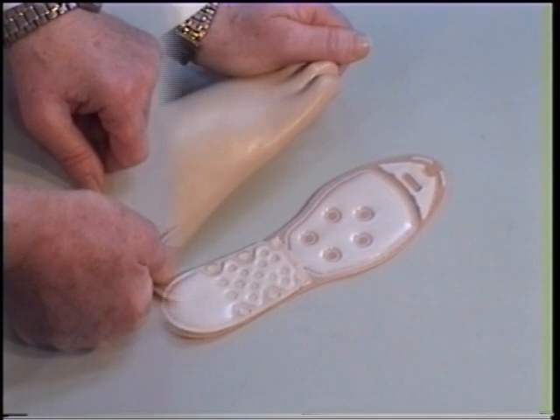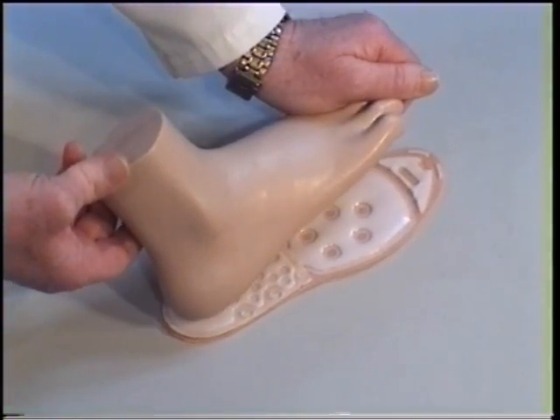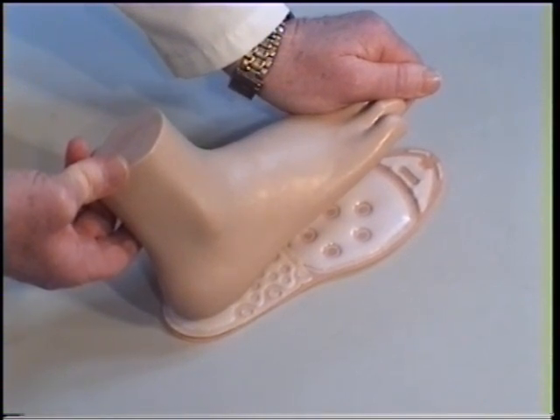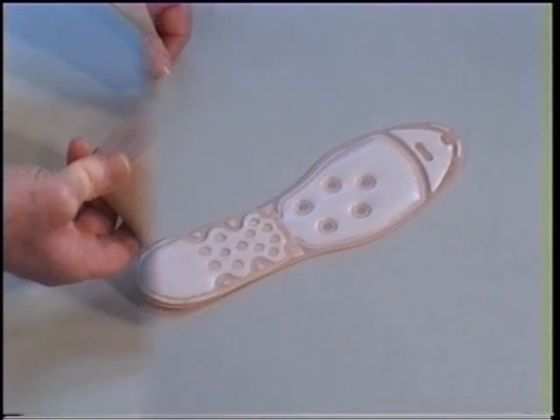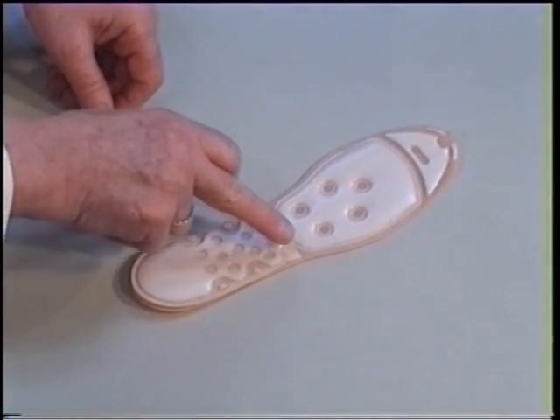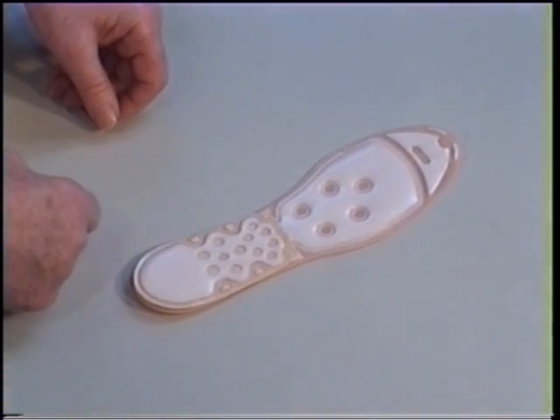With the heel protector, a large amount of shock absorbing is achieved as well as a continuous pressure relief of the heel, with a water cushion always adapting to the heel bone. The heel protector is welded to the sensory water-filled massage soles by means of 6 weldings.